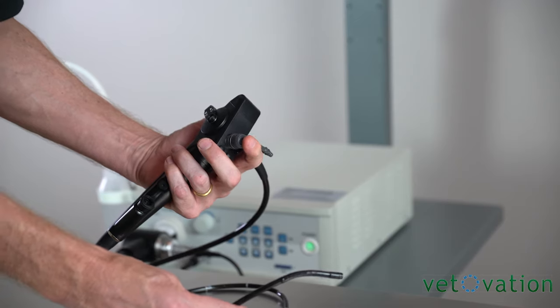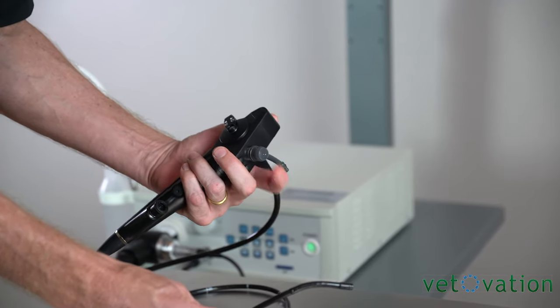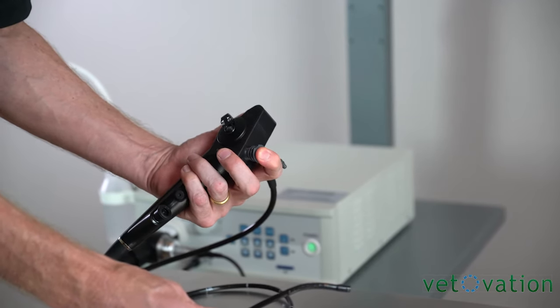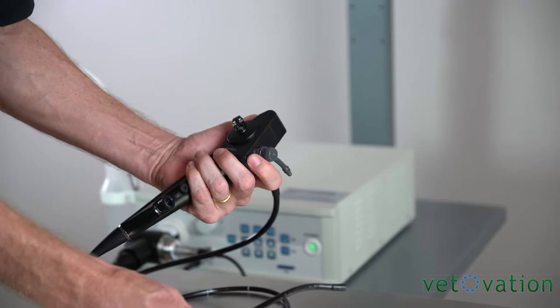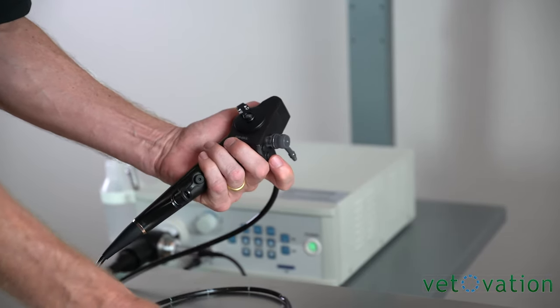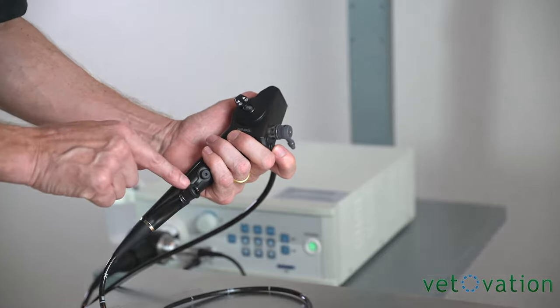If you want to hook the scope to oxygen, you can do that there and then depress the button to give oxygen. Taking pictures and video is controlled here and your working channel is here.